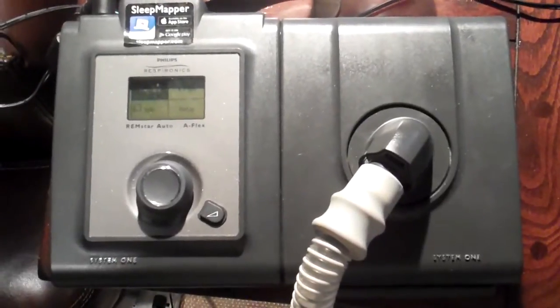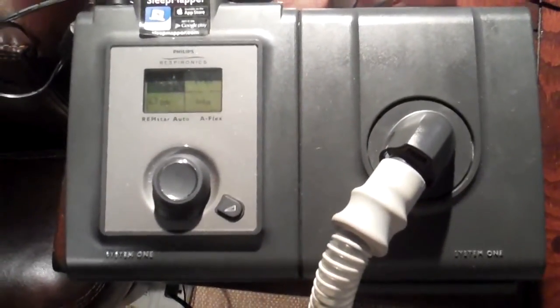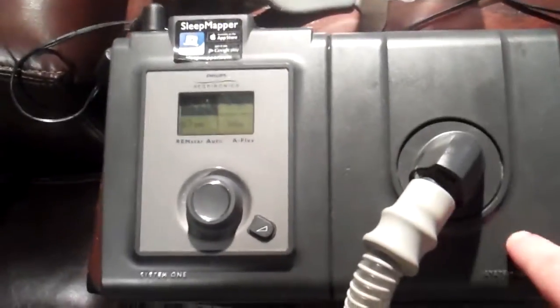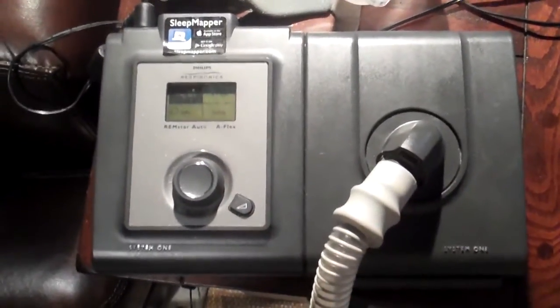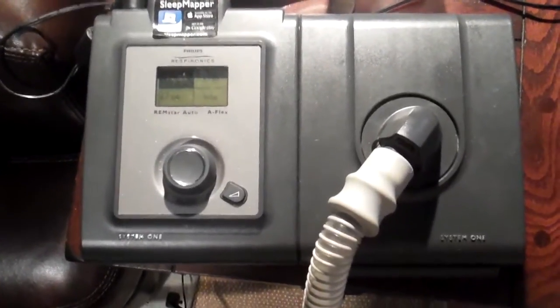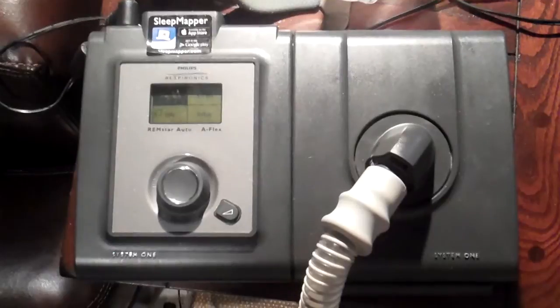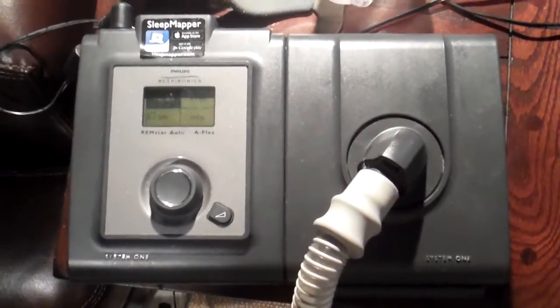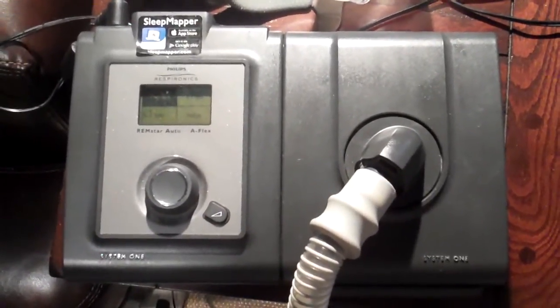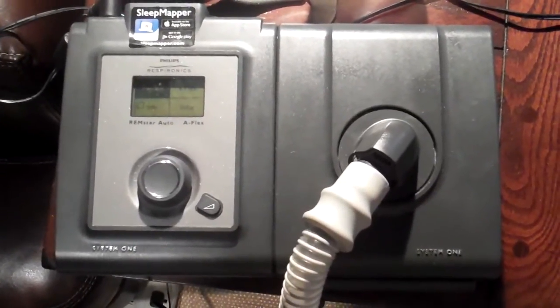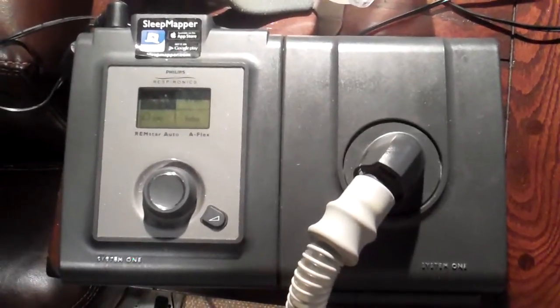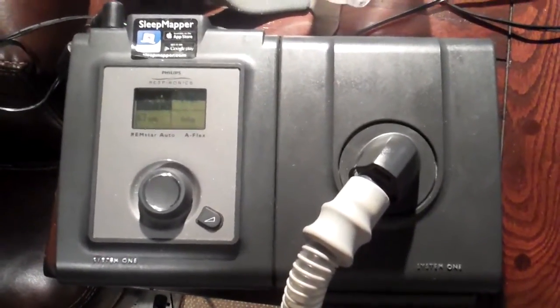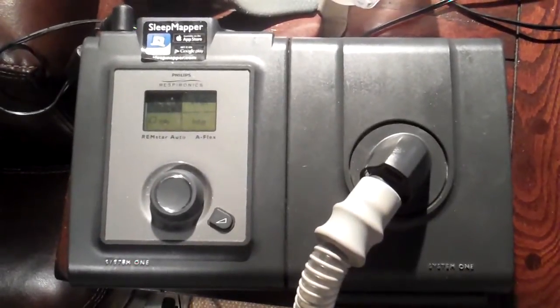I was able to get diagnosed and got this machine. Now what this machine is is a CPAP, actually this is an auto CPAP, which means some of the functions are automatic on it. If you are a truck driver or an airline pilot or a boat captain like myself, you're going to get an education about what this is all about, because anyone with a neck size I think it's 19 inches or greater that meets other criteria is going to be flagged for sleep apnea.